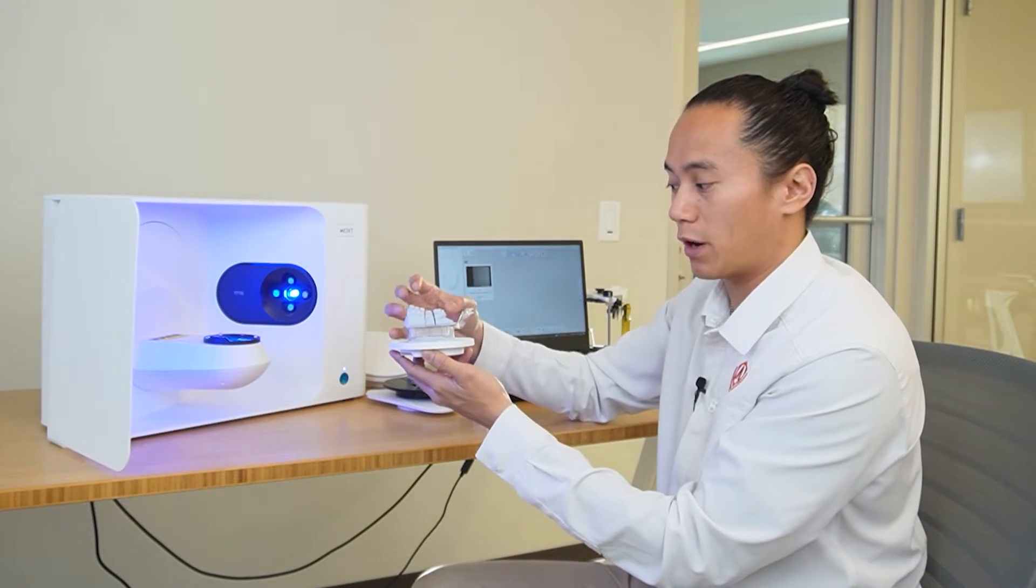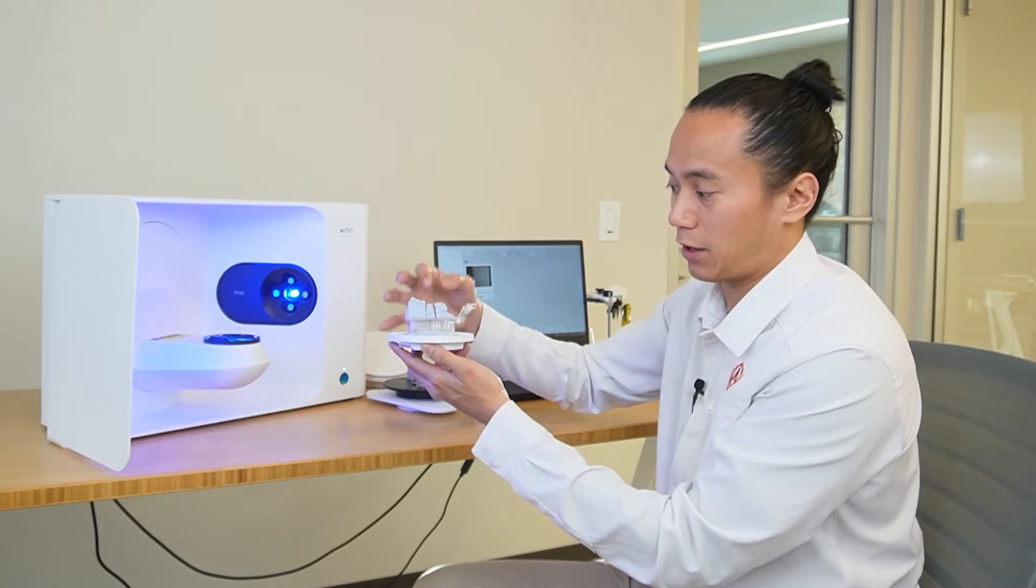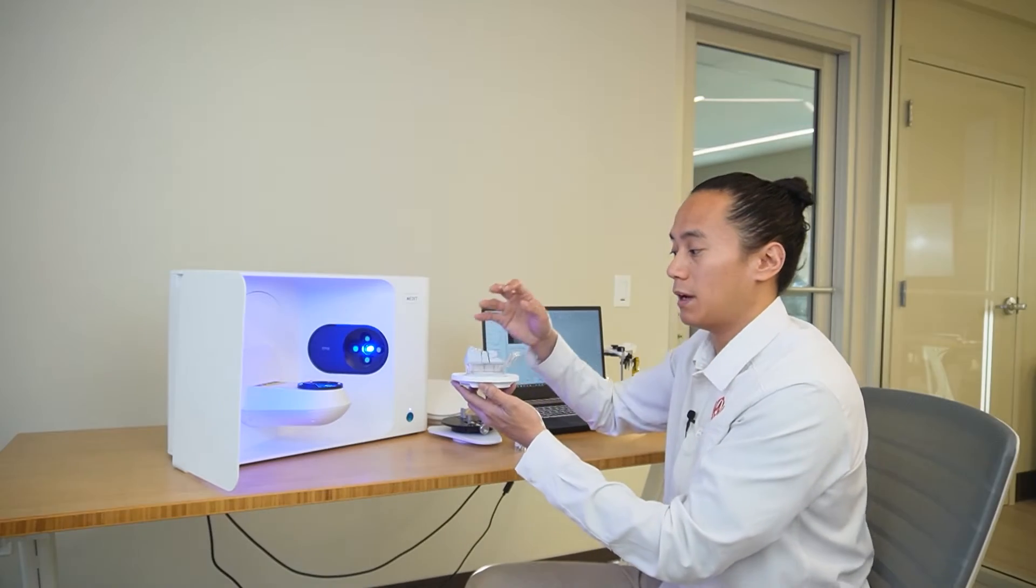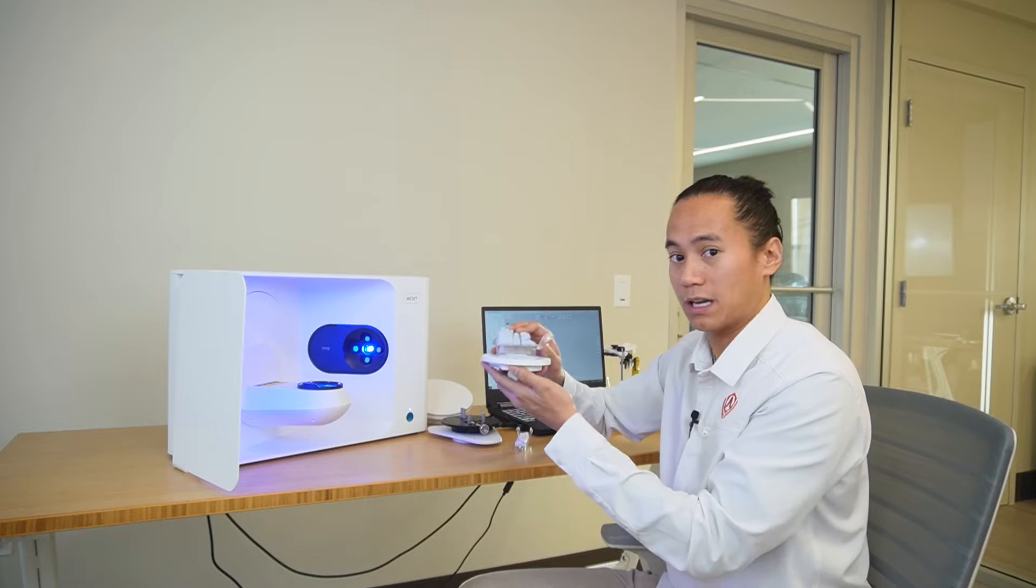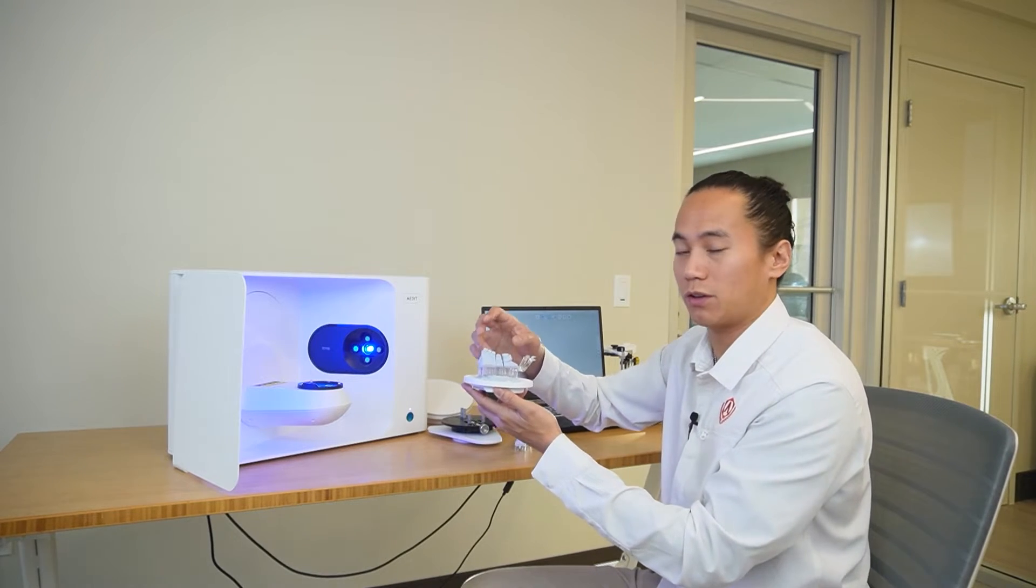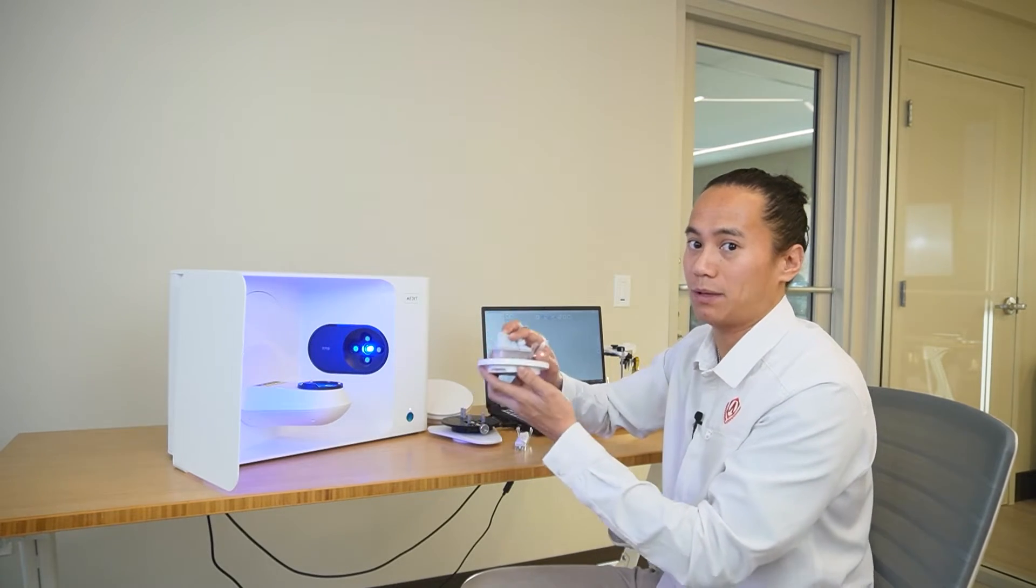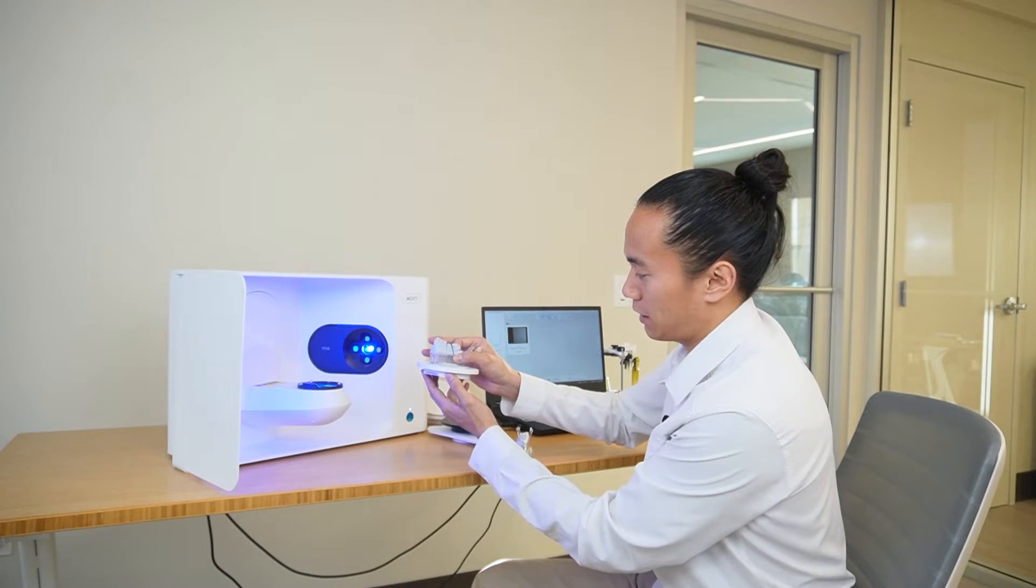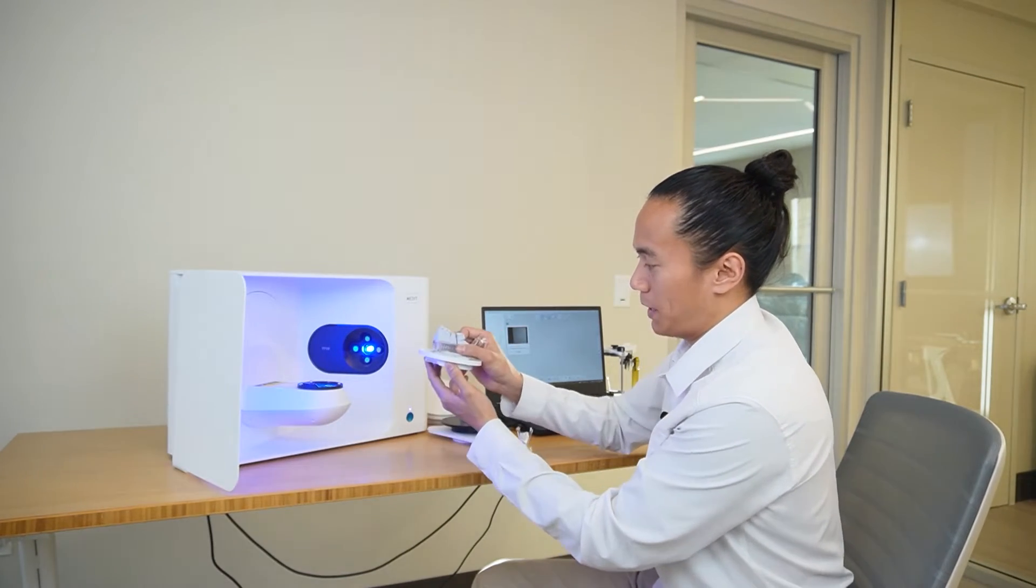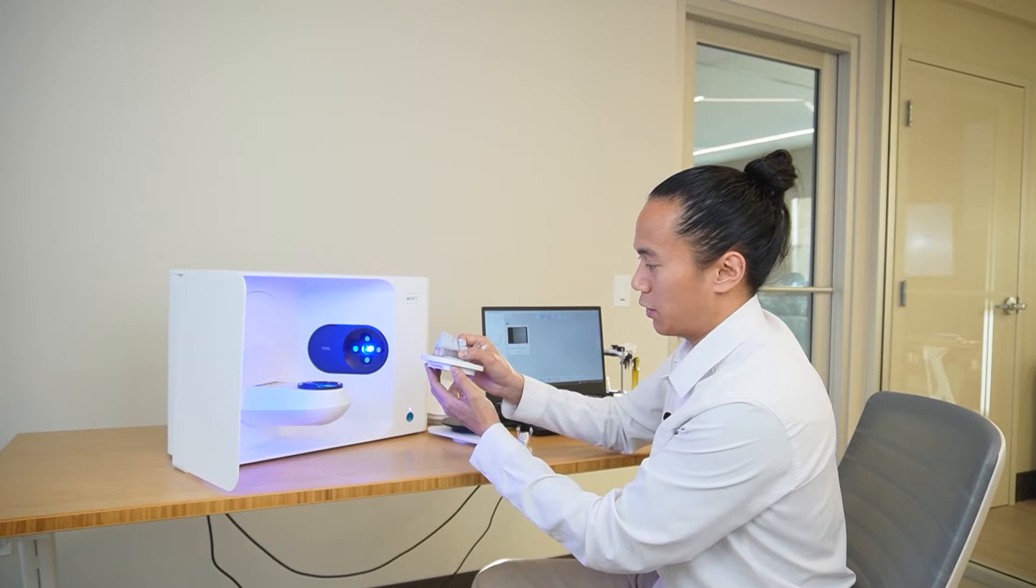Even if your adjacent dies and teeth are in the way of the actual prep, it's going to give us an extra step because we told it that we're working with dies to remove the additional adjacent die and just scan the prep in the following step. So from here, again, double check that your base model is solid and there's no wiggle.